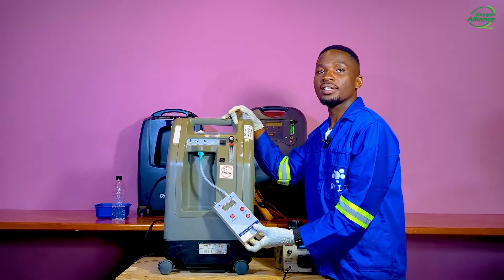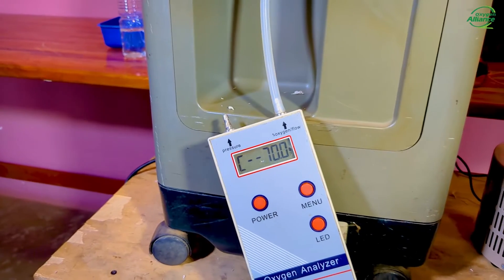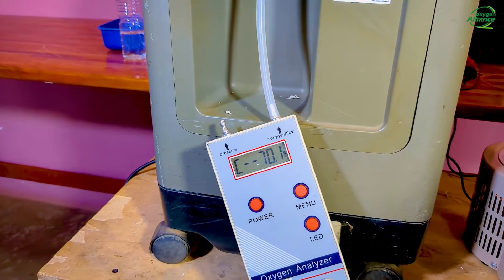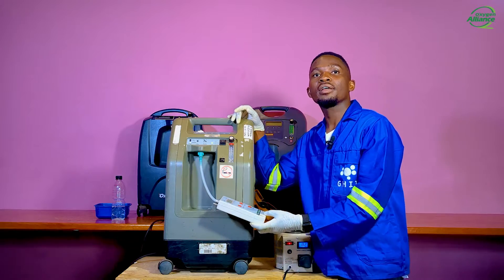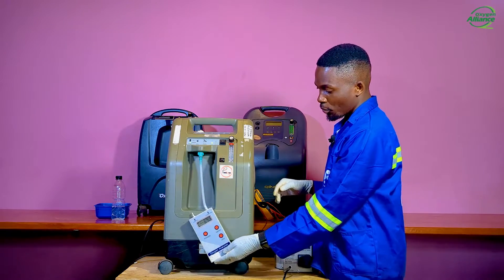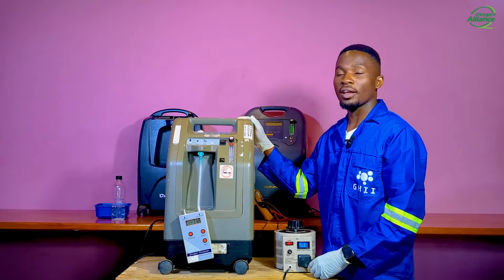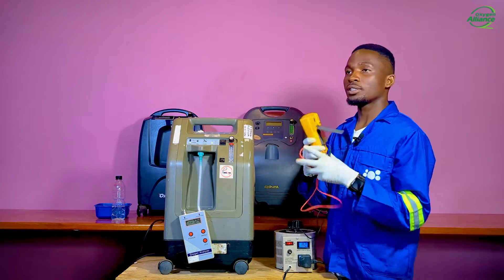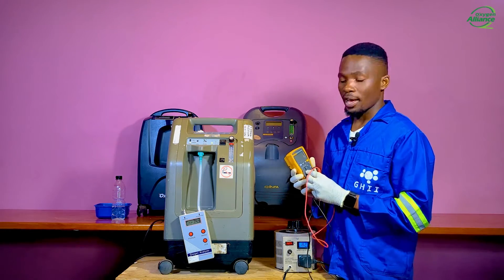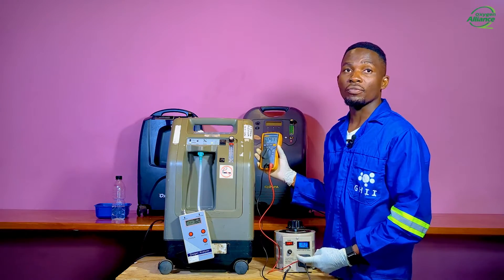As you can see, the oxygen analyzer is registering an oxygen purity of around 70 to 75%, which is too low and could be dangerous to the patient. As mentioned earlier, this may be caused by low voltage input, so you need to check whether your socket is supplying enough voltage to run your oxygen concentrator. To do that, you will need to use a multimeter, set it at AC voltage, and measure the voltage coming out of your socket.